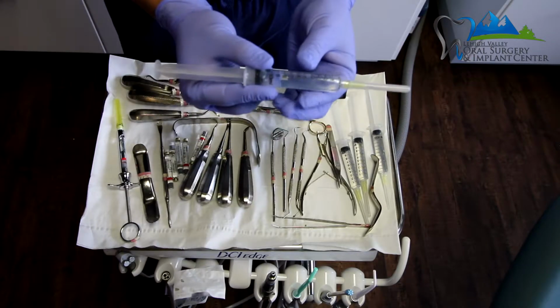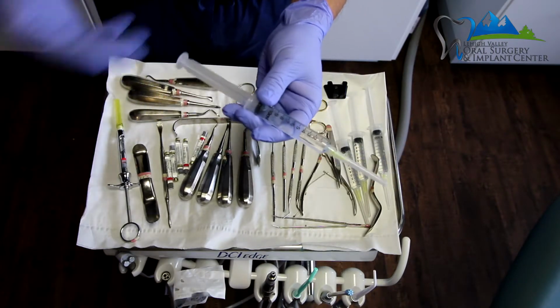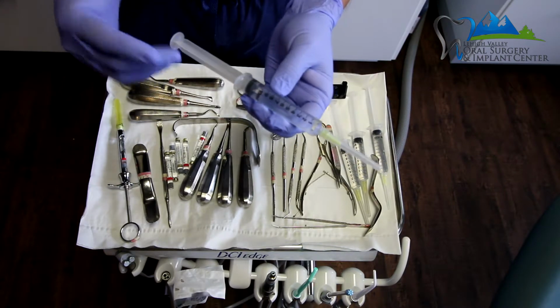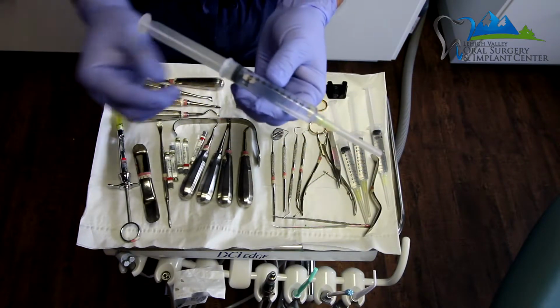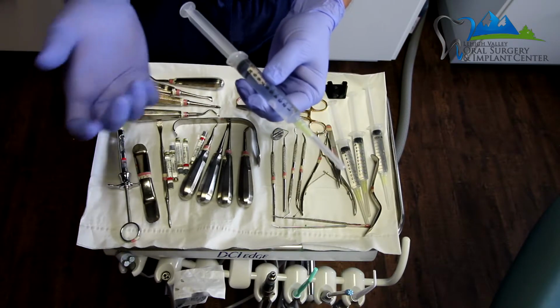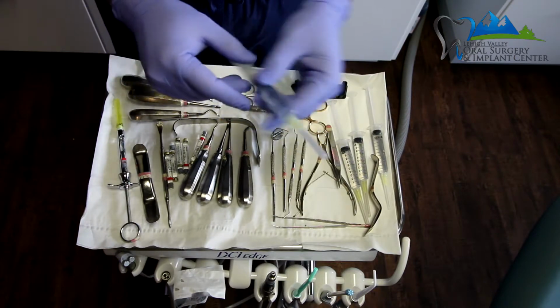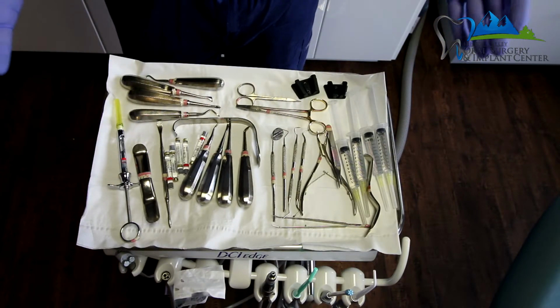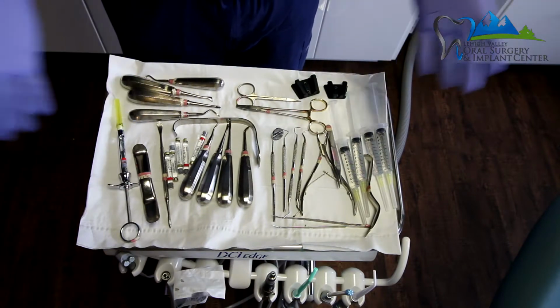And so irrigation is utilized usually at the end of the procedure or sometimes during the extraction to kind of clean out the blood or any other tissue that might be in the extraction site. It can come in a 10 cc syringe like this, which is filled with sterile water, and it's sterile inside and outside as well. Or it can be in a monoject syringe, which again we use sterile saline to put in that monoject syringe. And that is the full simple extraction setup that we have for every single dental extraction.